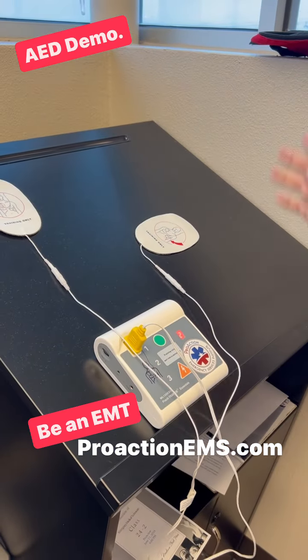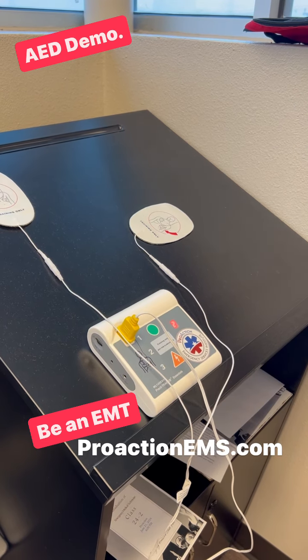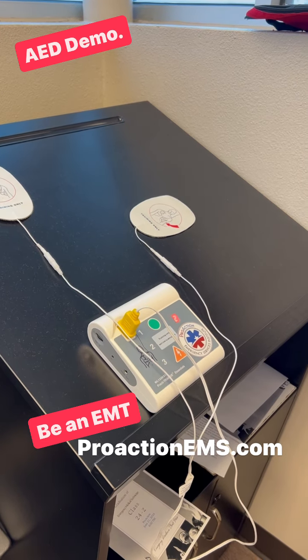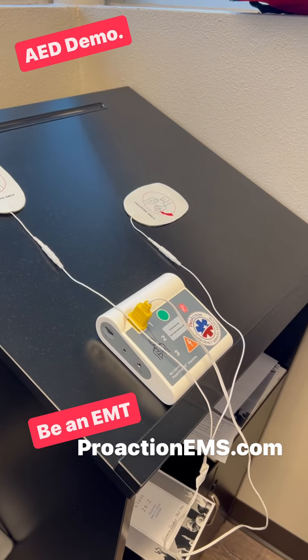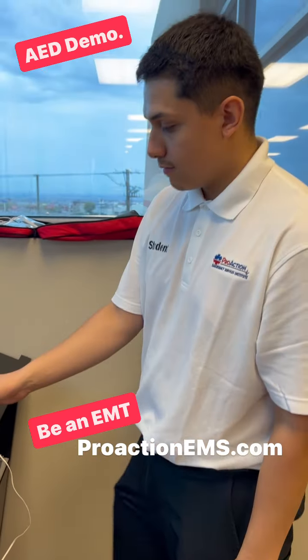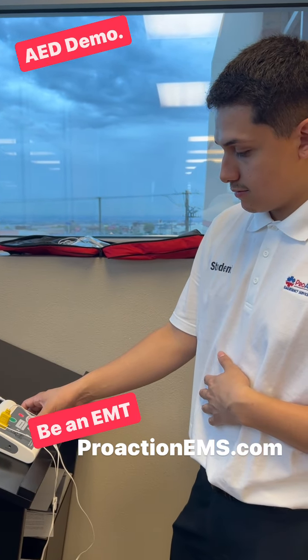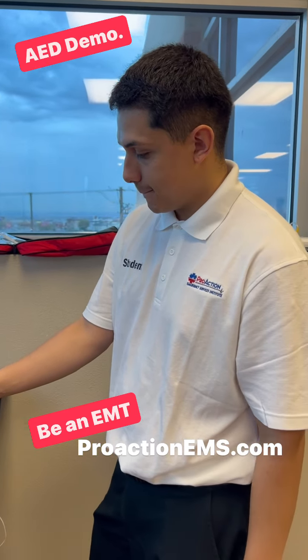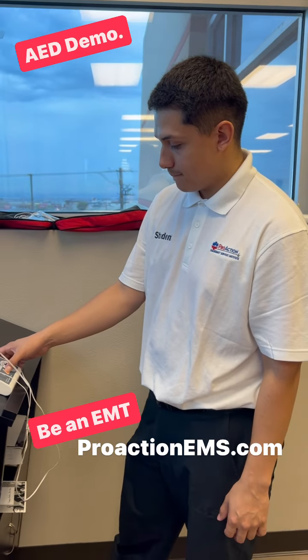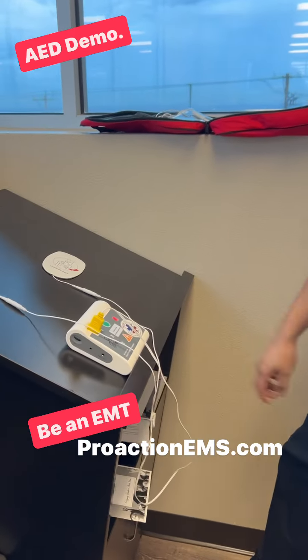It should say Analyzing heart rhythm. Call rhythm first, and it should say deliver shock. Do not touch the patient. Shock advised. That's when you deliver a shock. Charging. Stay clear of patient. Deliver shock now. Shock delivered.